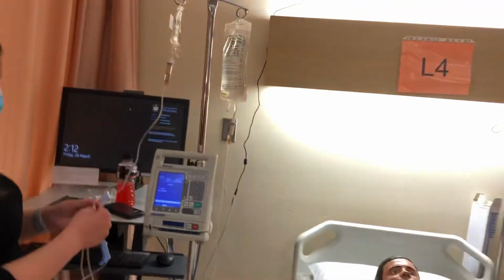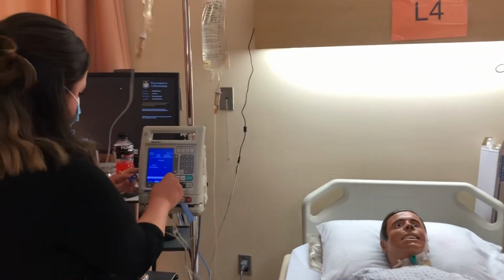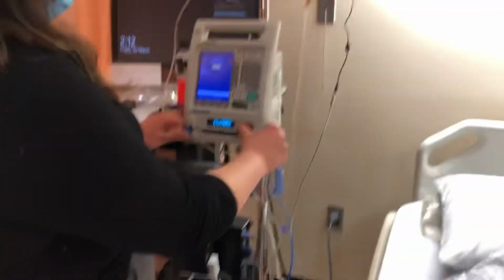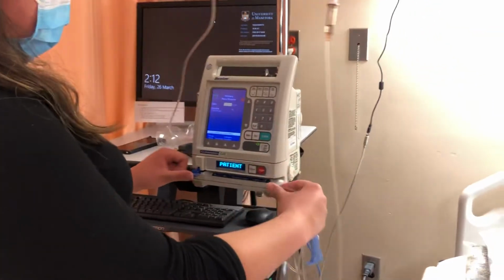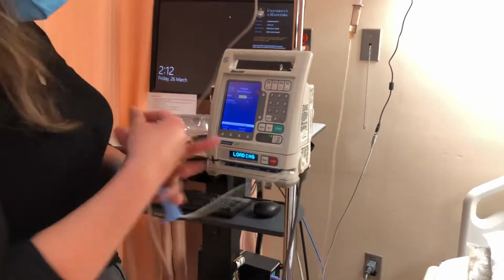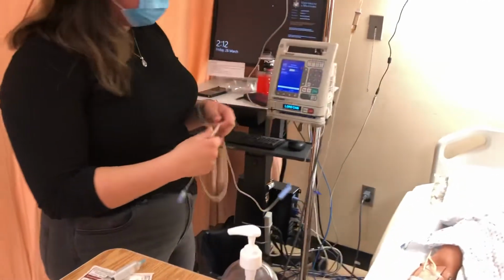And I'm going to insert into my pump right away. So for primary, I'm going to open. This would go in the sharps container in a bit. I'll just remove the bubbles and make sure that it's all the way. So now that that's loaded, I need to ensure that I'm using the colleague guardian setting.